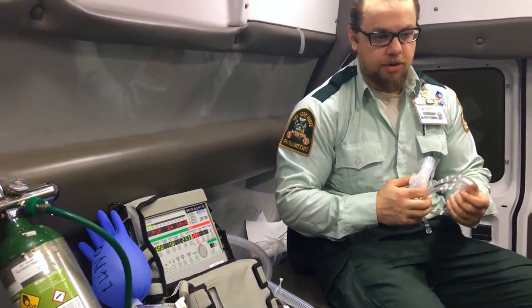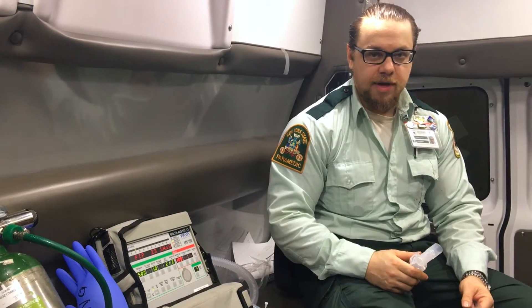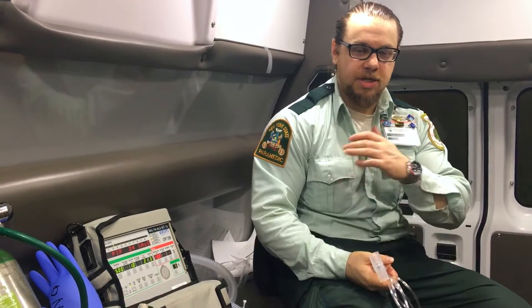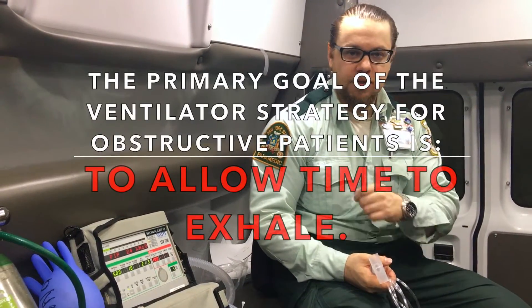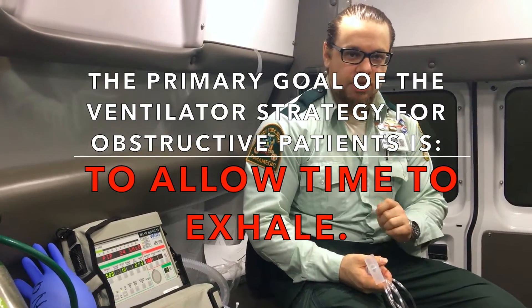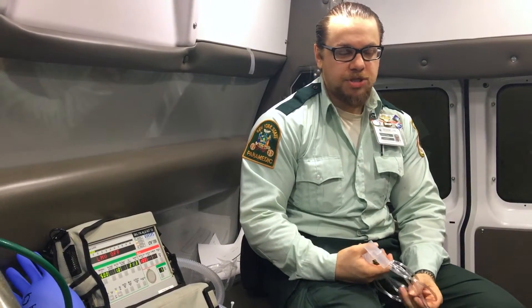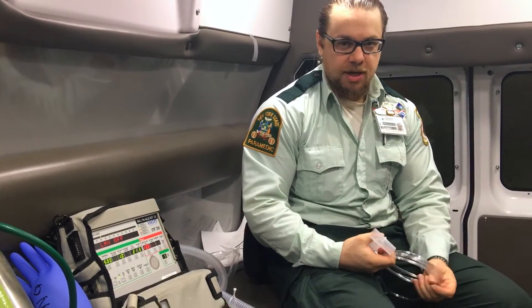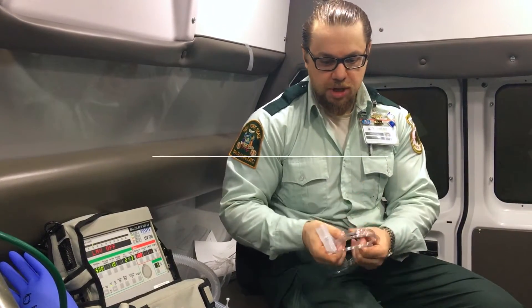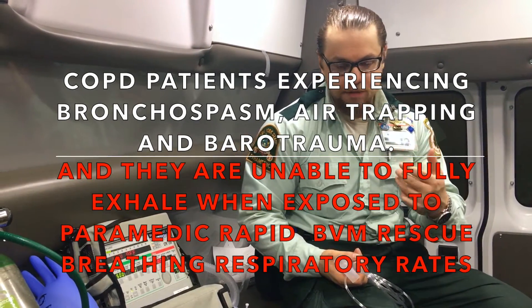Imagine you have the following scenario. You're called for a respiratory emergency in a nursing facility. You come, you assess the patient, and you find a patient who has COPD. Obviously the first thing you do is disconnect the ventilator and make sure there's no problems. There are no problems with the ventilator. You auscultated the patient's lungs and you hear wheezing. The patient has a tracheostomy and he's being vented on the ventilator. Patients who have COPD need that expiratory time, and coming in there with a BVM and forcing high pressure and high respiratory rates is not giving them any relief.